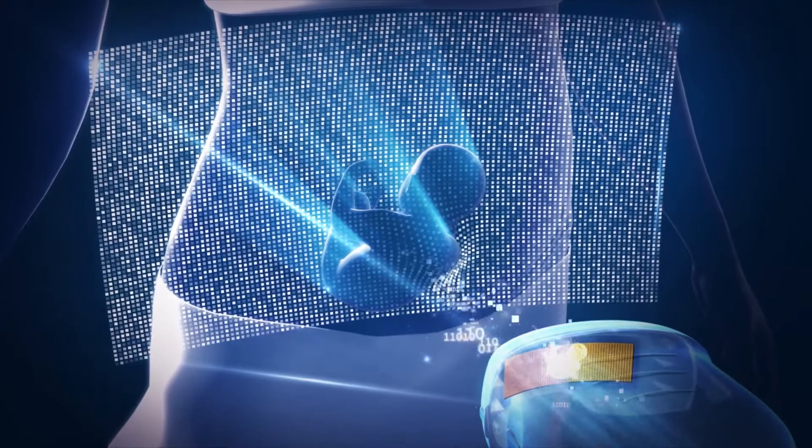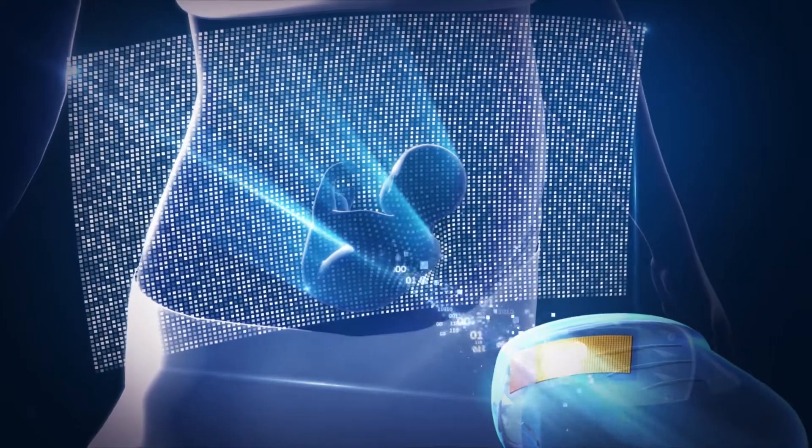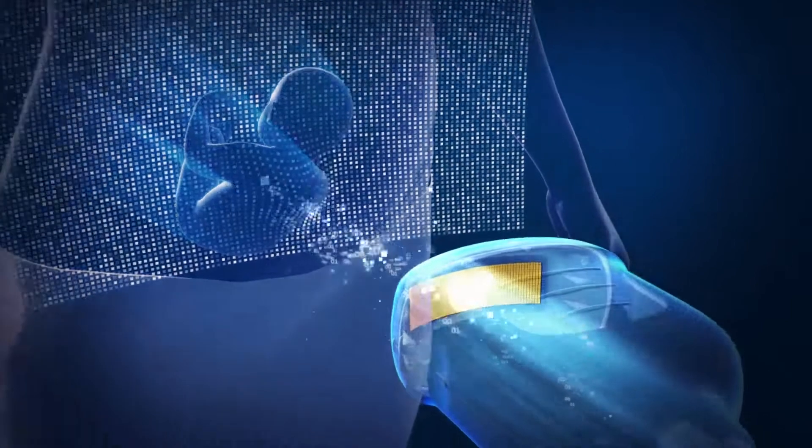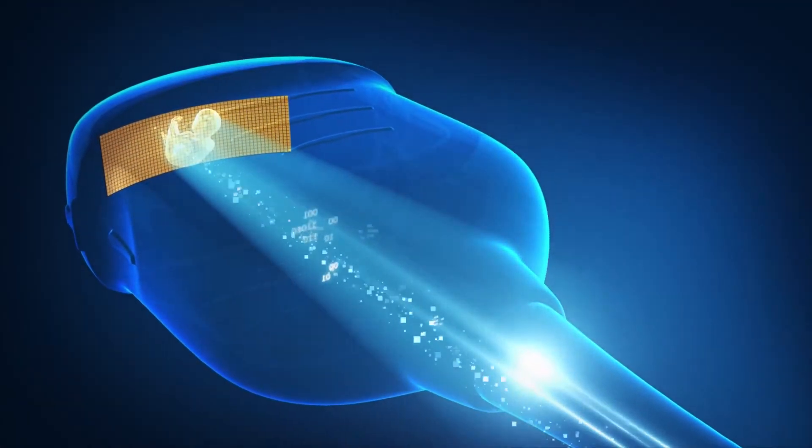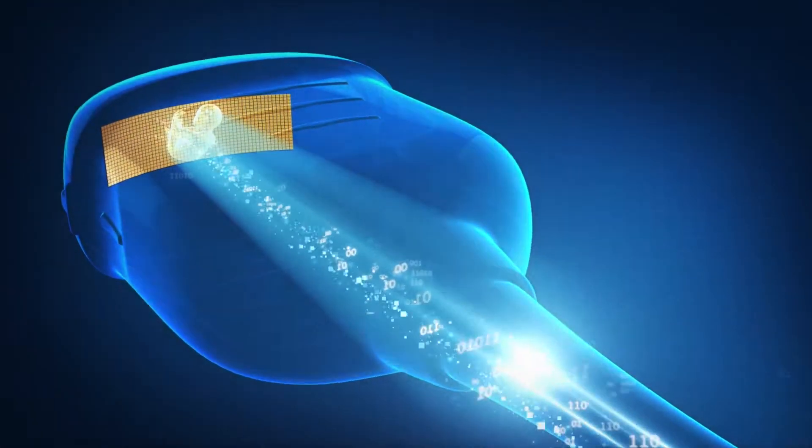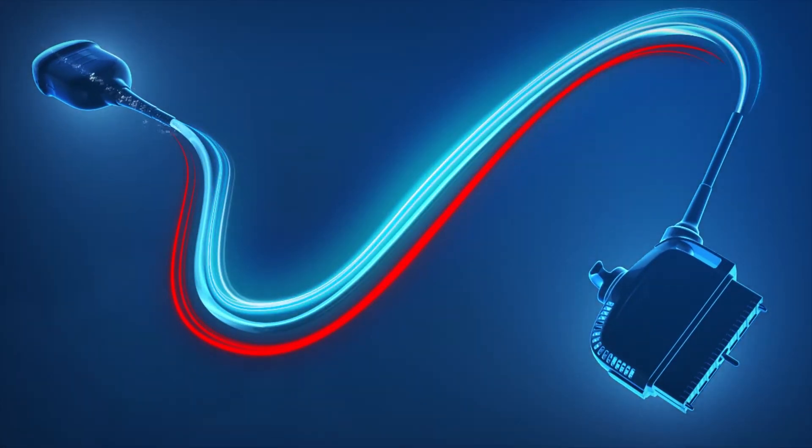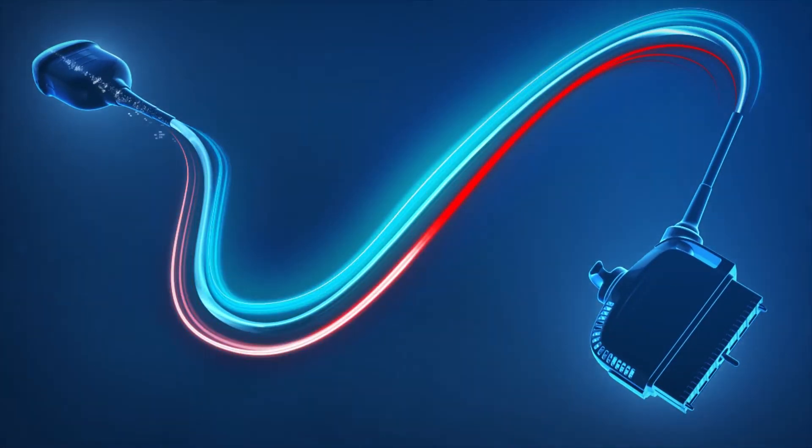Electronic beam steering enables the EM6E to deliver ultra-fast volume rates for real-time display of motion and superb visibility of anatomical structures and functionality. The electronics in the handle generate heat, which in turn requires heat dissipation.